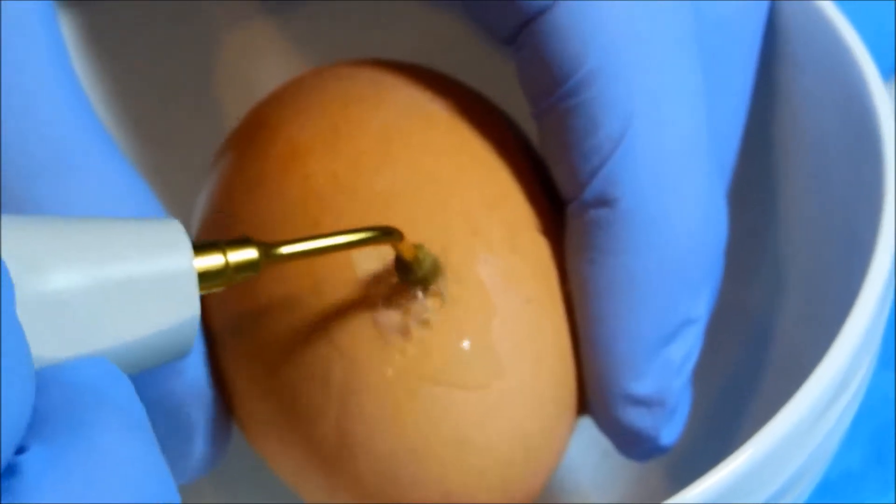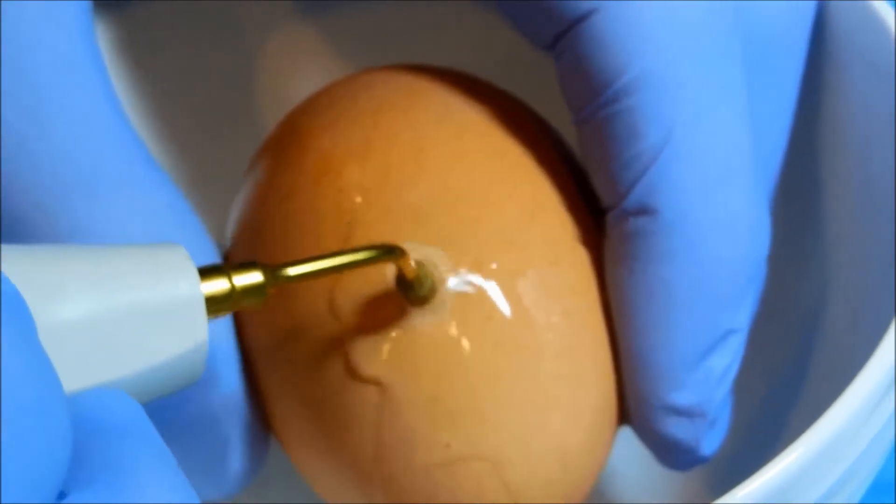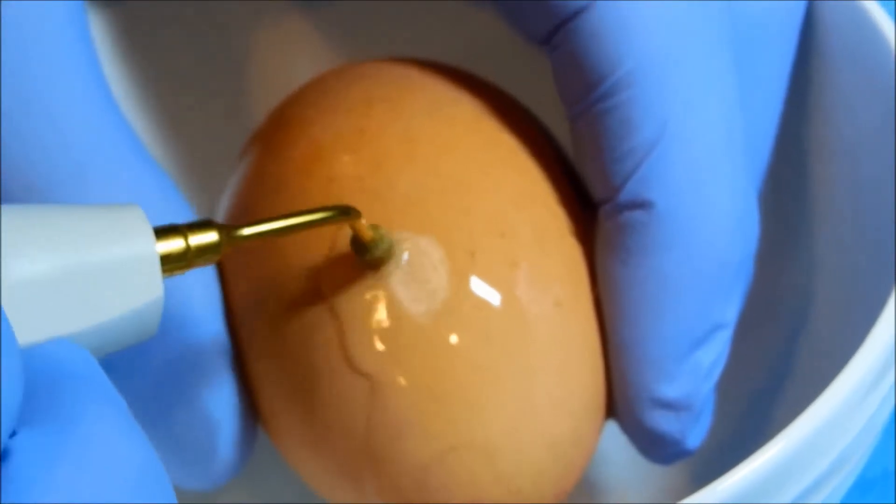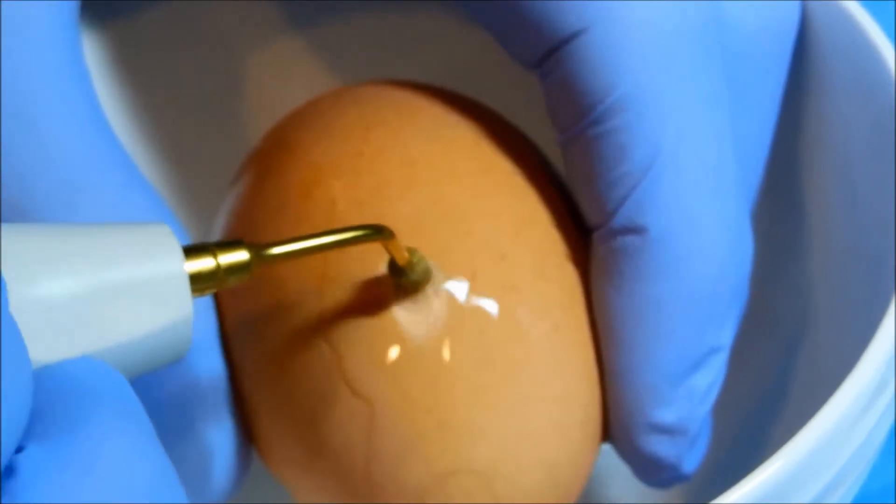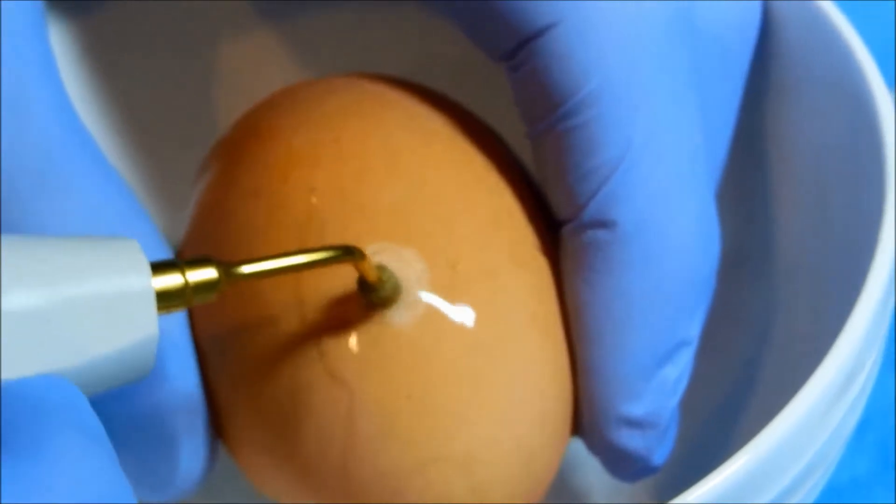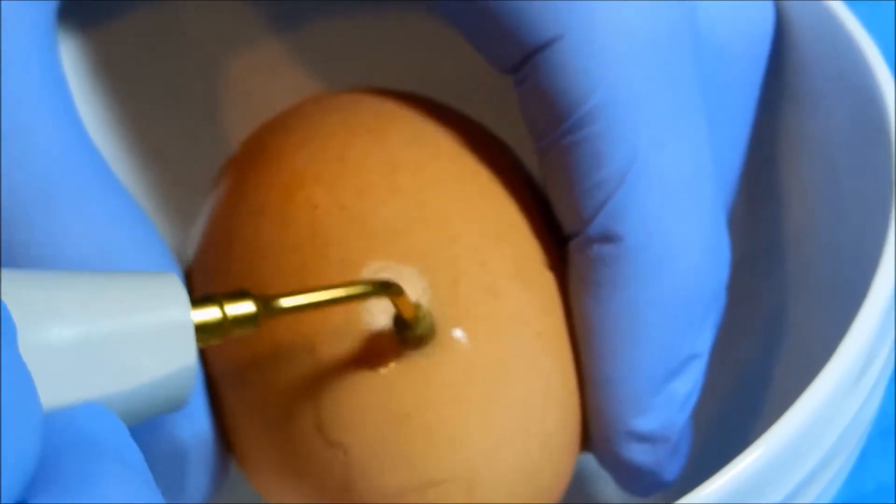And here I am going in particular circles very slowly. You can see that we're slowly removing the top layer of this egg.